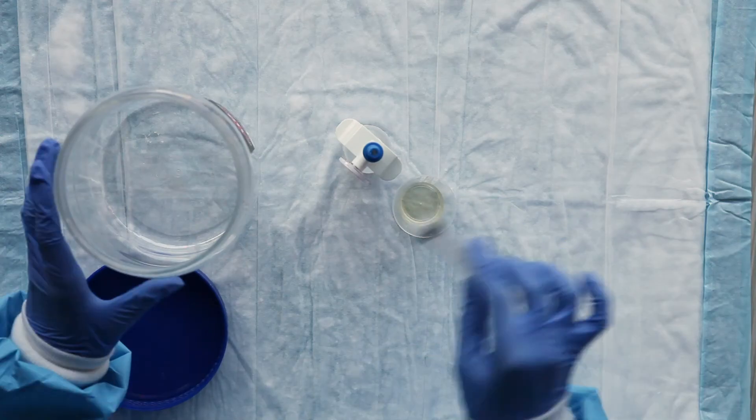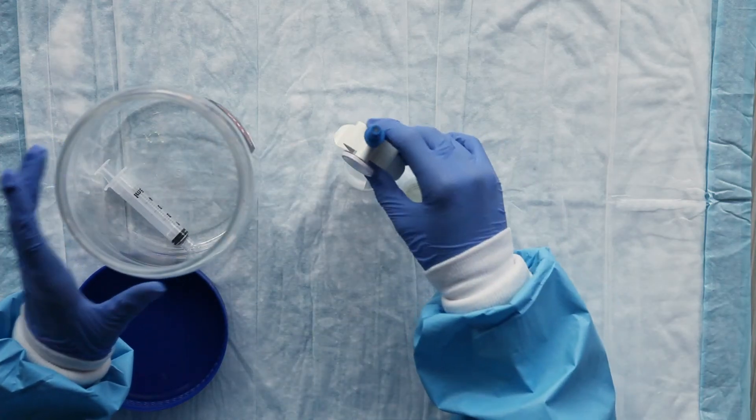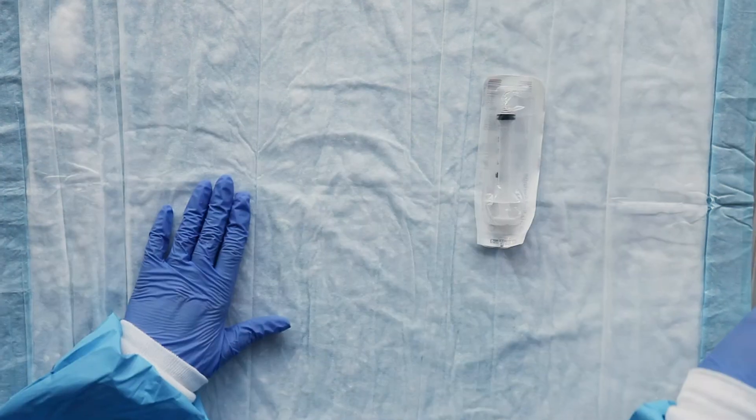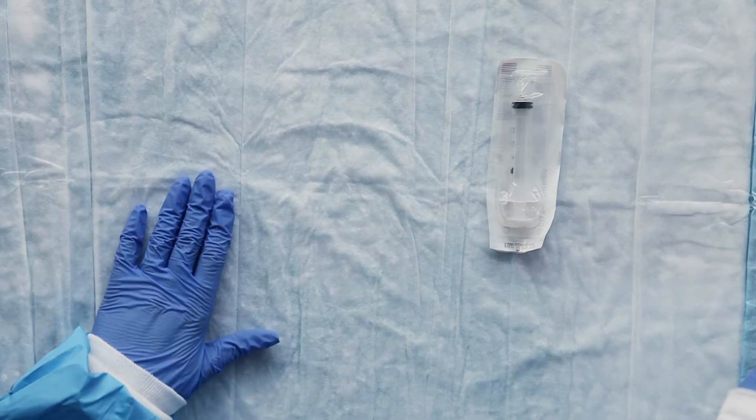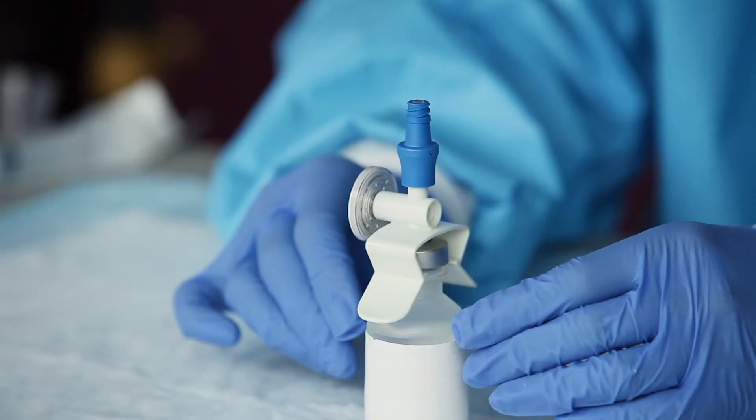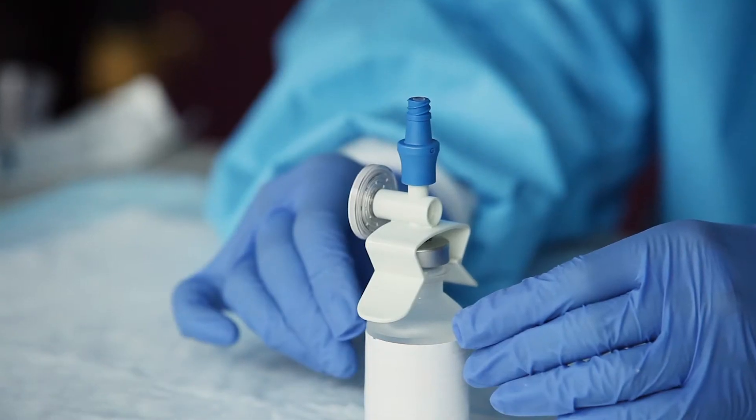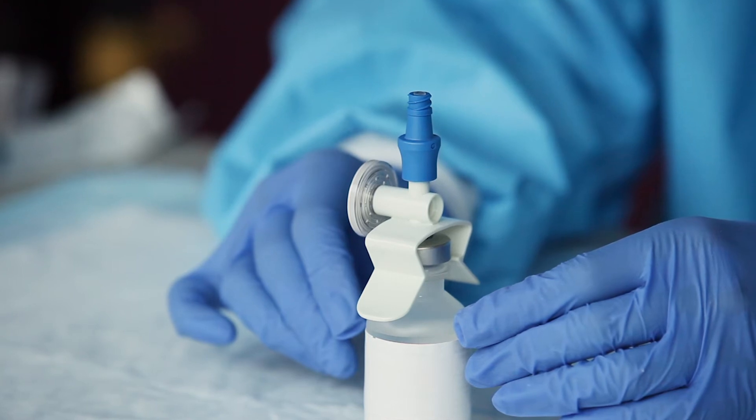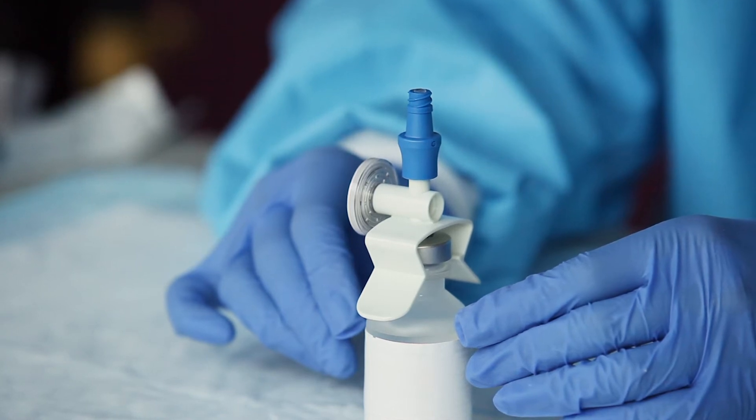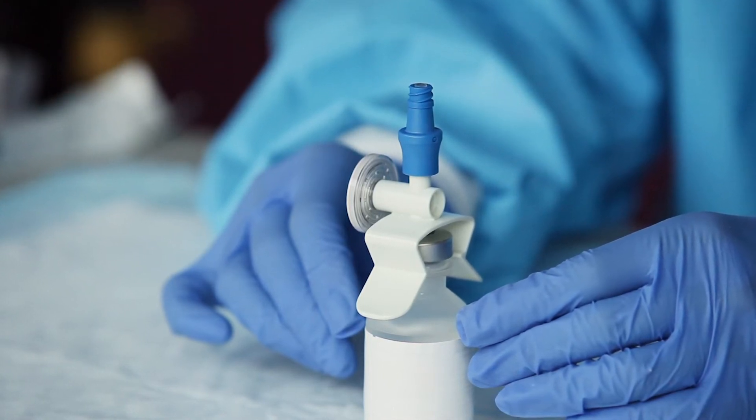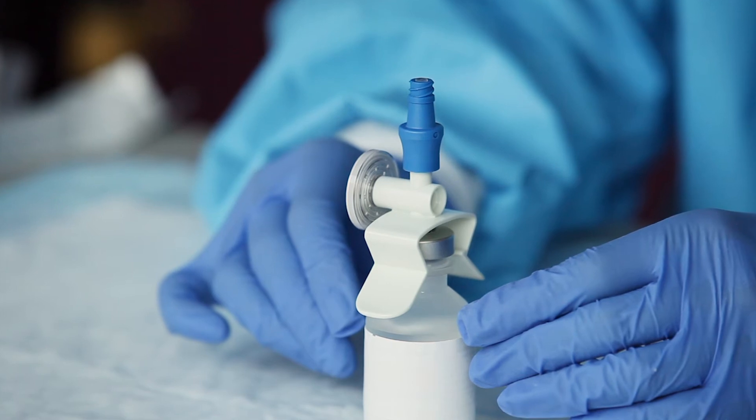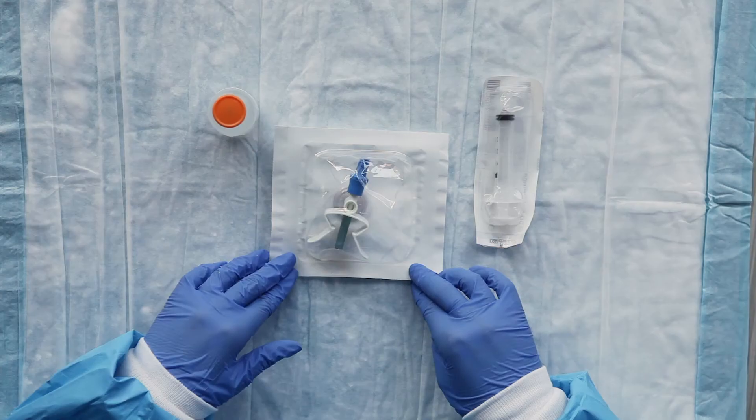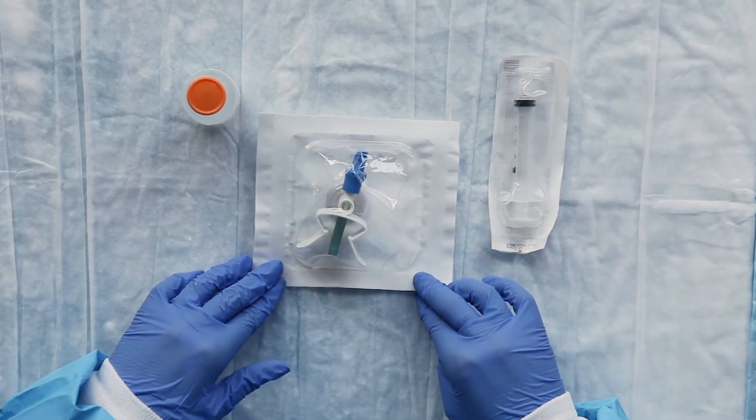Once you are done, throw the syringe into a container for disposal. You will use a new syringe every time you prepare a dose. The vial spike can remain in the medicine vial and can be used for other doses. Store the vial upright in a cool, dry place protected from light. Use a new vial spike for each new medicine vial that you use and discard the empty medicine vial and used vial spikes into the disposal container.